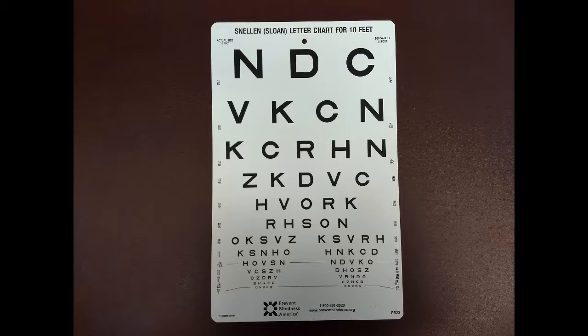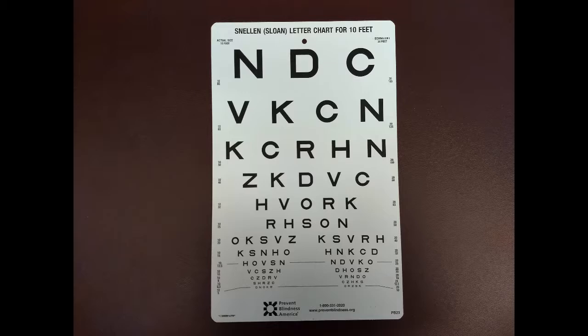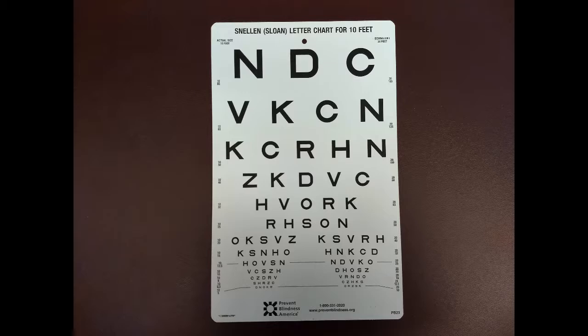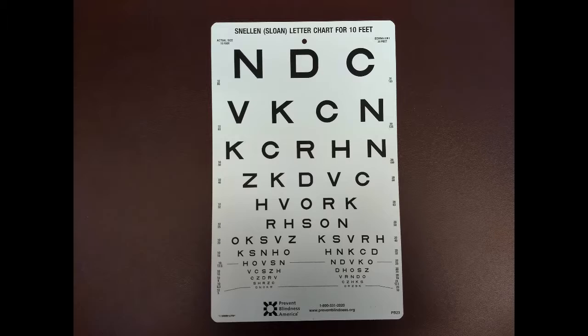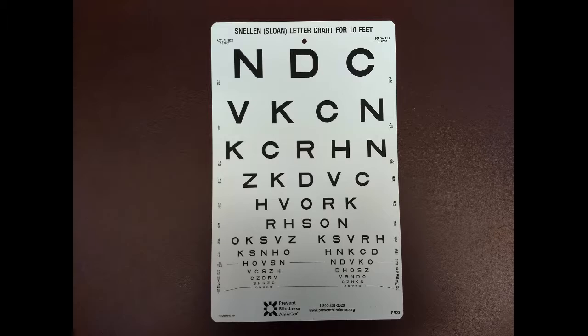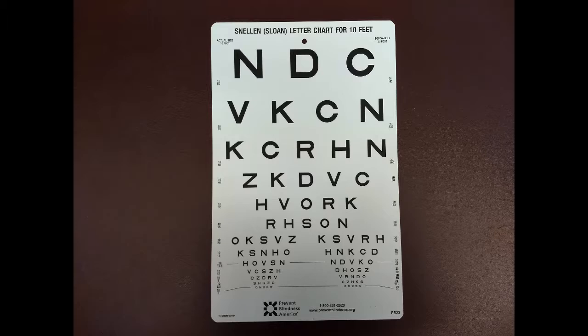The top part of the fraction shows how far away the patient should stand from the chart, while the bottom number shows how far away a person with normal vision could read the letters. For example, if the patient can read the fourth line, then he or she can see at 20 feet what someone with normal vision could see from 80 feet away.